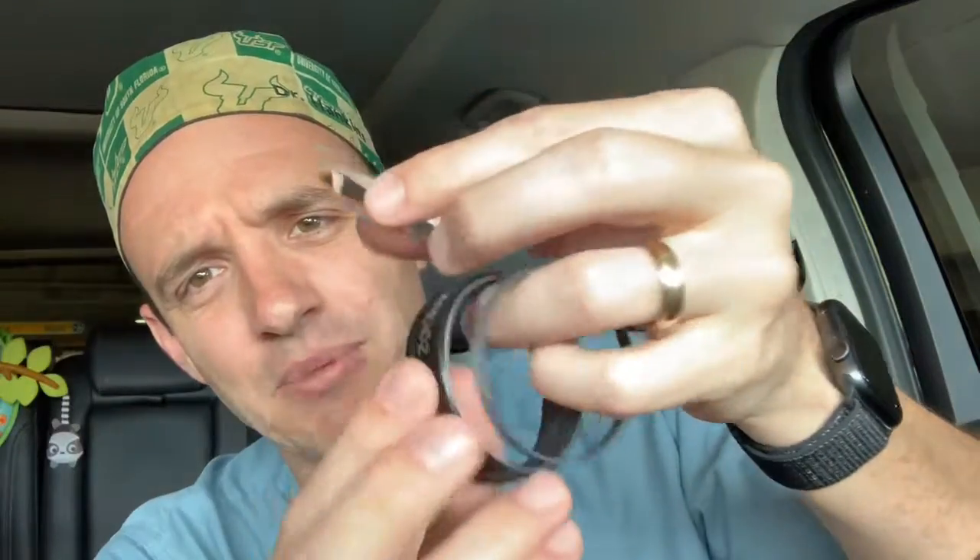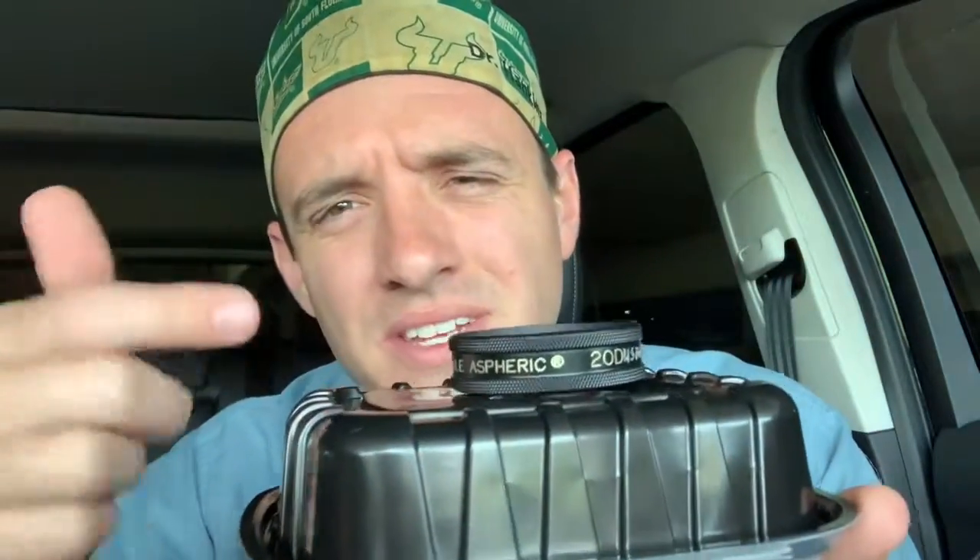Is this the new beveless 20-diopter lens — sort of like Samsung's new cell phones? Not quite. Is it a broken 20-diopter lens? Wrong again. I just took it apart. Try this next case. You hear that? What is that? Is that a broken 20-diopter lens as well? No, of course not. It's just loose. What's up with this? Why doesn't it sit flat? It'd get all scratched up this way. The lens is just in backwards.